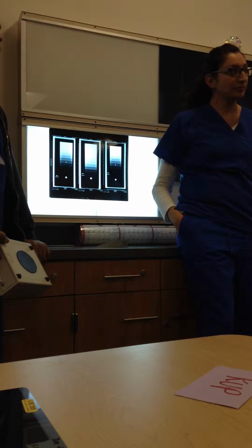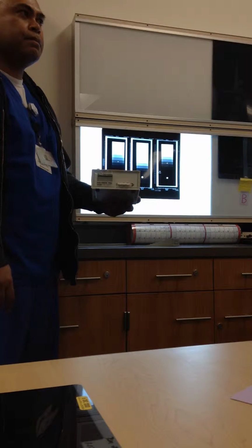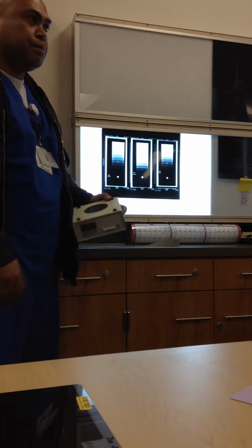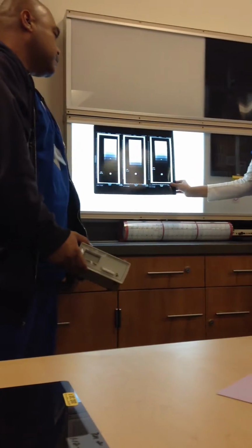Good. And what's another alternate way to measure that? To measure reproducibility? I have an ion chamber. Turn it on, make an exposure, and it gives you a reading right here. So you set the same technique consistently, you should get the same reading, right? All right, perfect. Ionization chamber, step wedge, both of those. Okay. Reproducible.